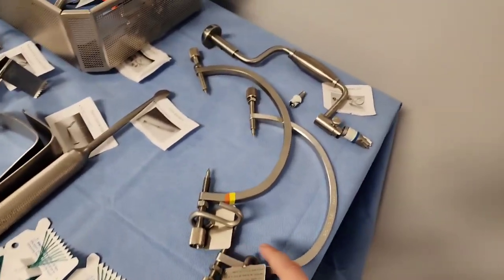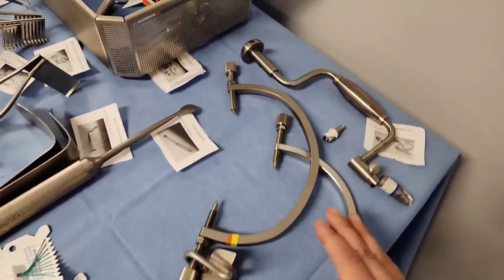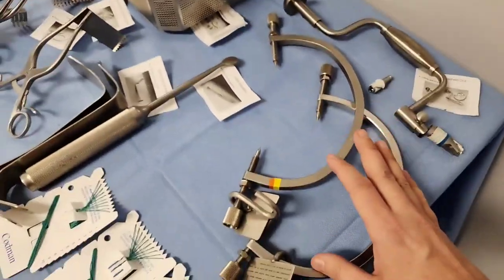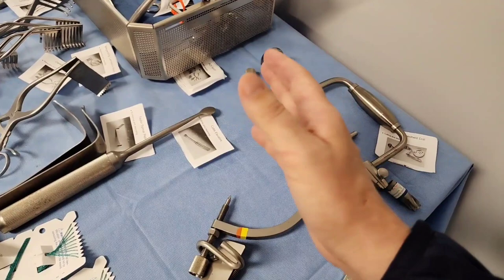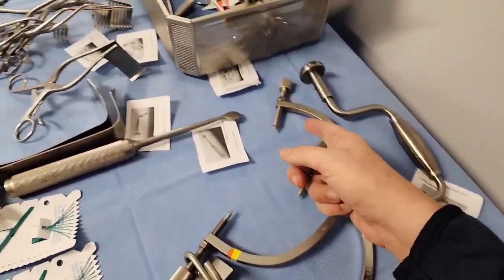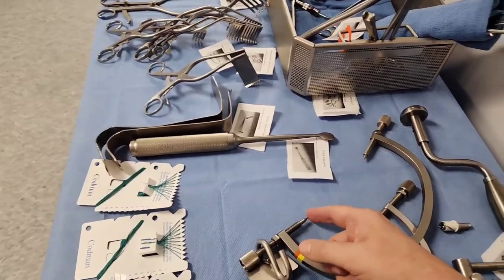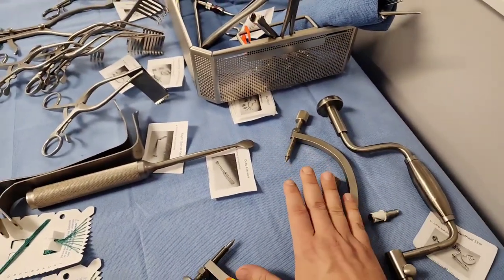This strange-looking device — anytime neuro is in play, you want something that's going to fixate the actual head onto the bed. The OR bed comes in three different parts: a leg, a body, and a headrest. That headrest comes off and is replaced with something called the Mayfield headrest. This is the fixation part — very sharp on each side. It fixates the actual head in the proper position; it's not going anywhere.